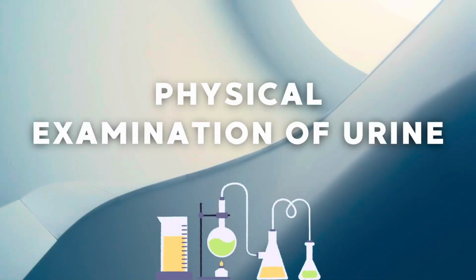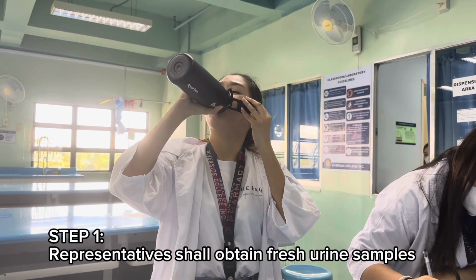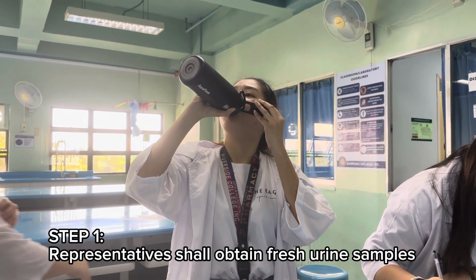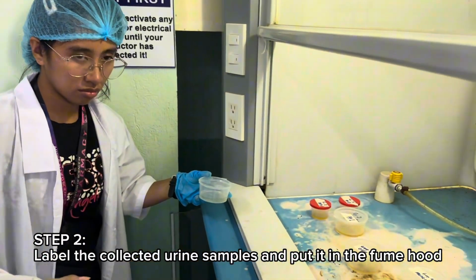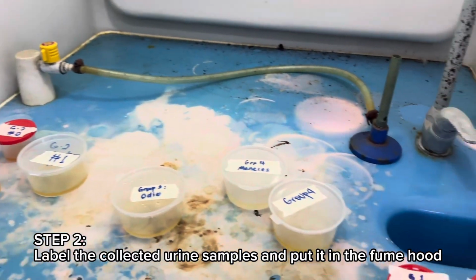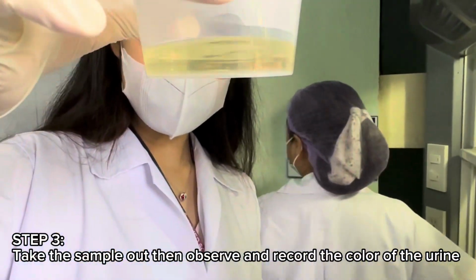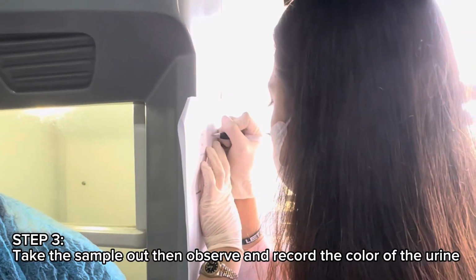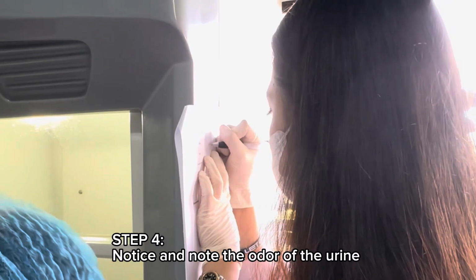Physical examination of urine includes color, odor, transparency, and pH. Step 1. Representatives shall obtain fresh urine samples. Step 2. Label the collected urine samples and put it in the fume hood. Step 3. Take the sample out, then observe and record the color of the urine. Step 4. Notice and note the odor of the urine.